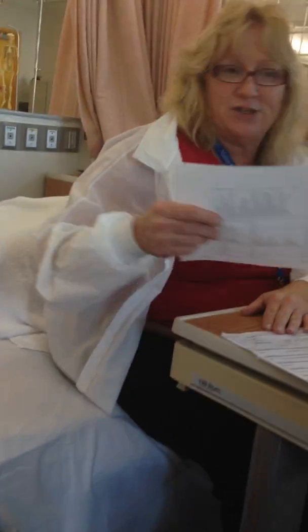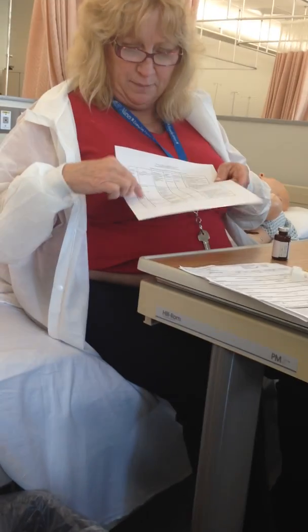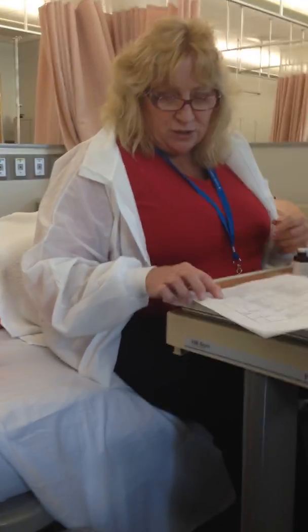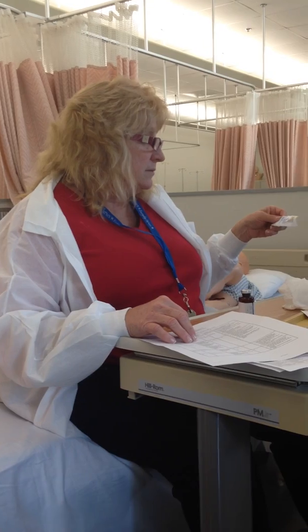Yeah. She stole it. Okay, so right here it says intradermal, sub-Q, and then the IM injections start here and continue on the back. Now, the intradermal and sub-Q are always 25, 26, 27, 28. This is a 26 gauge. I've seen them up to 29 gauge. Any of those are proper for giving the intradermal or the sub-Q, and are the same size and length.